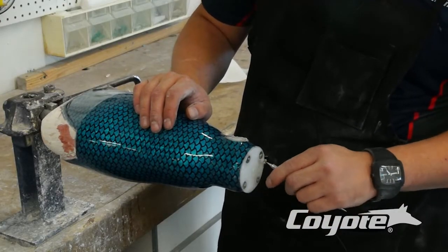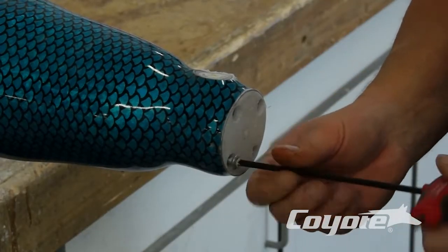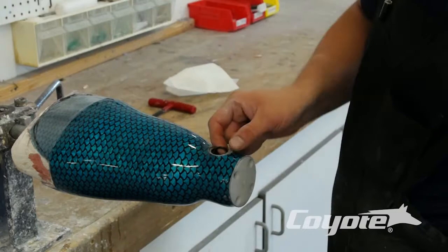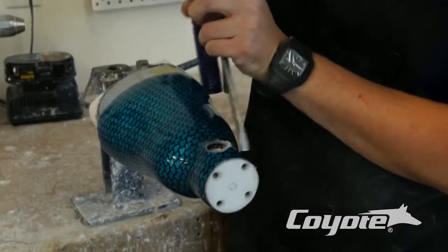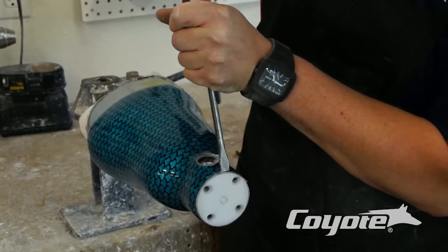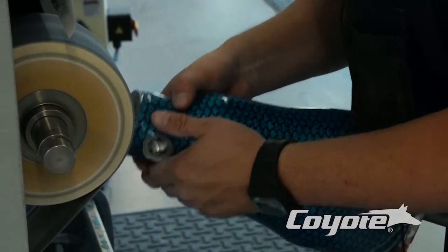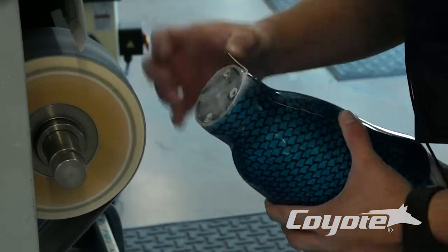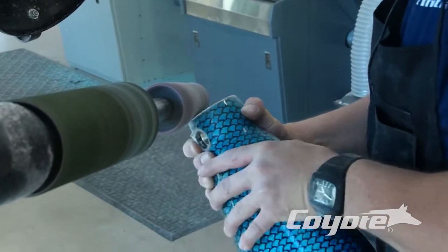So now we've ground the bottom of this, exposed our four screws on our five hole plate, and we need to remove these screws as well. We've exposed our dummy on our fabrication dummy for our push button. Now we want to remove this dummy as well. Now we have our five hole plate to remove. What I usually do is get a screwdriver and use the blunt end to lightly tap the edge of your lamination here — and there you go, that five hole plate will just fall right out. Then go back to the grinder and grind this completely flush to our screw heads so we don't have any extra material sticking out.